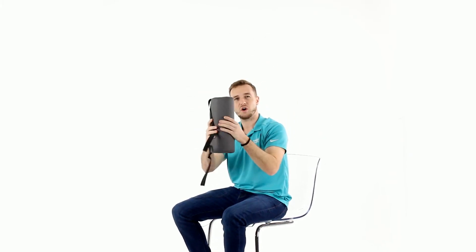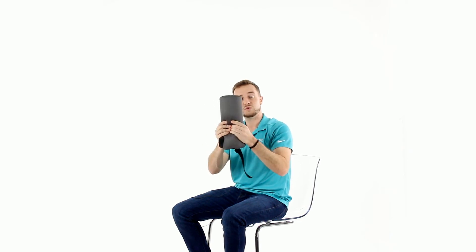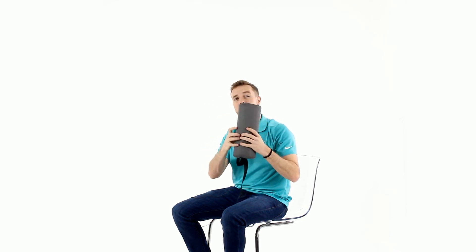As you can see, this is a hard memory foam, so it's nice and firm, but it's not going to be super hard. It's going to provide a lot of comfort as well.